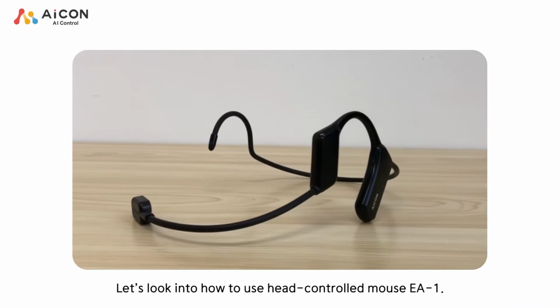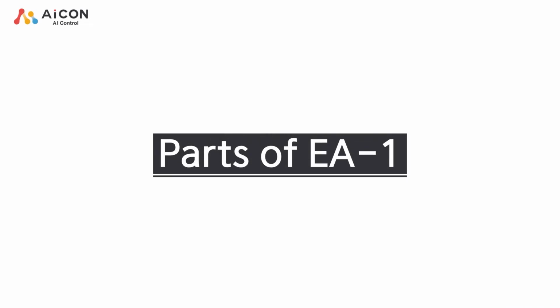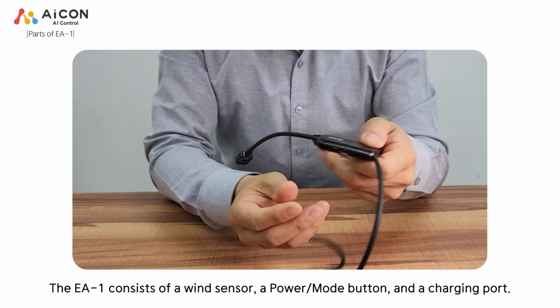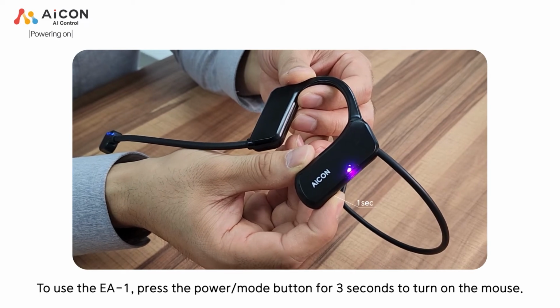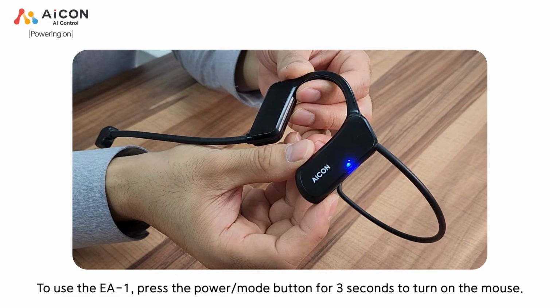Let's look into how to use head-controlled mouse EA-1. The EA-1 consists of a wind sensor, a power mode button, and a charging port. To use the EA-1, press the power mode button for 3 seconds to turn on the mouse.